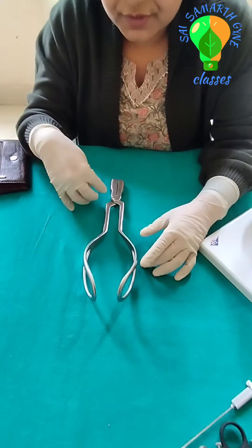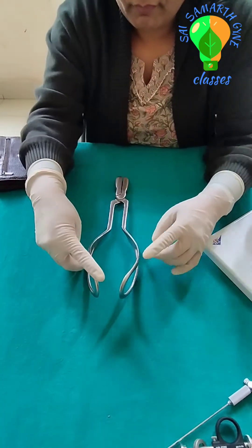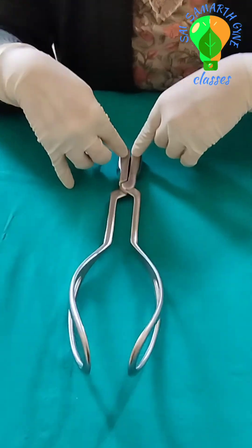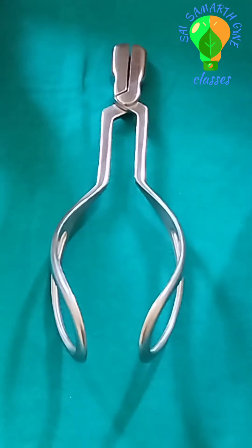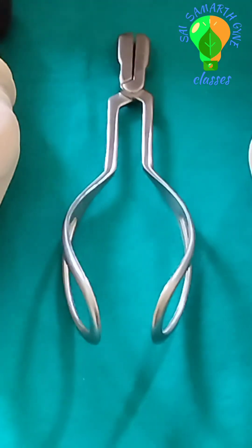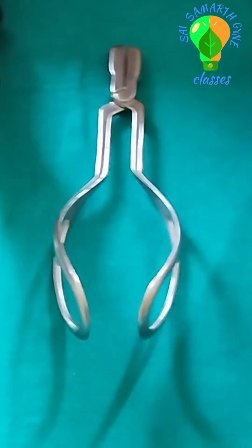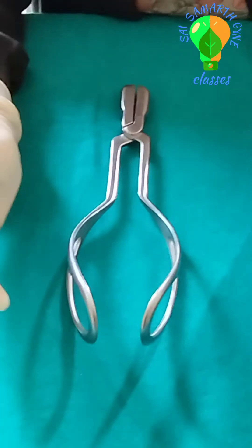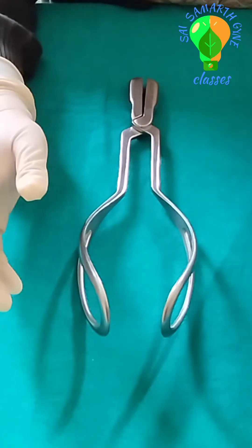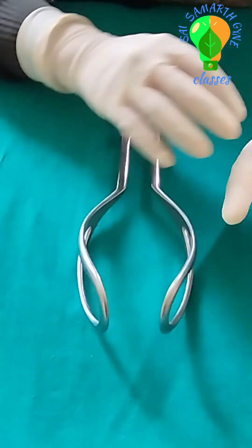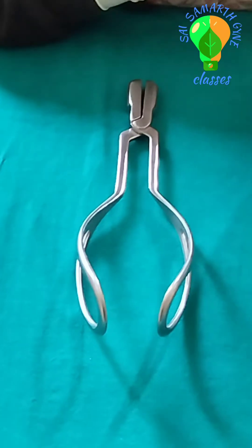These are a pair of outlet forceps. Outlet forceps are used when the fetal head is visible outside the labia and does not recede inside on its own, when the cervix is fully dilated, and when the internal rotation which is further required is less than 45 degrees.